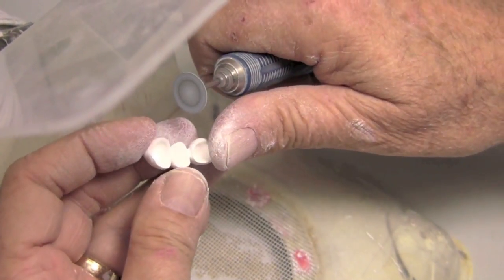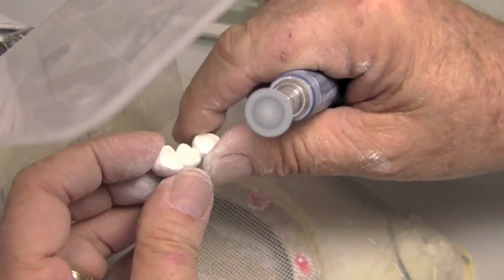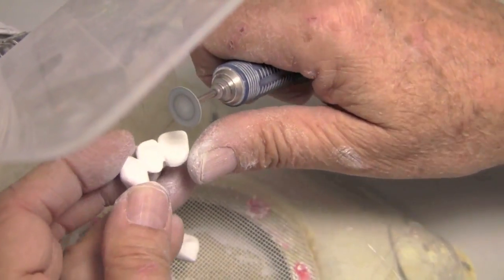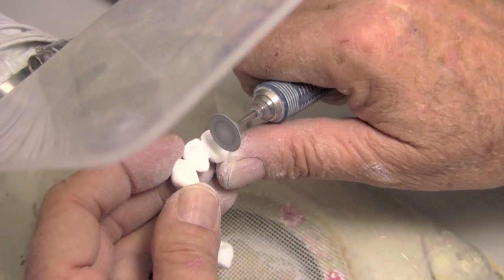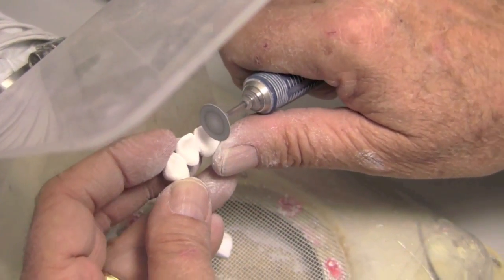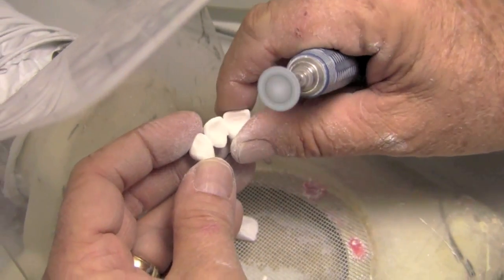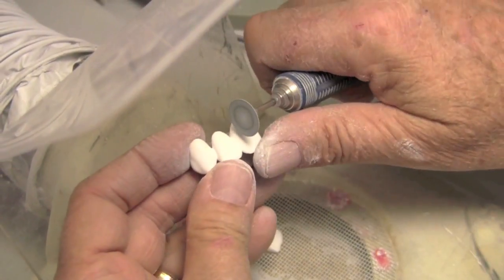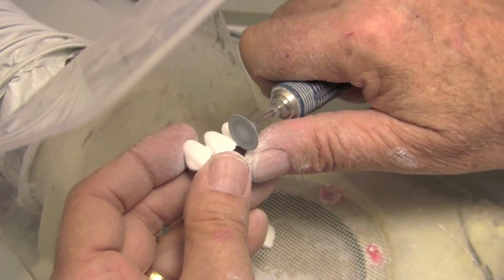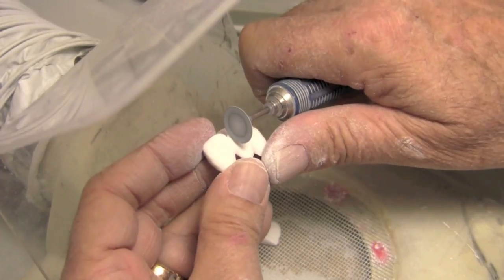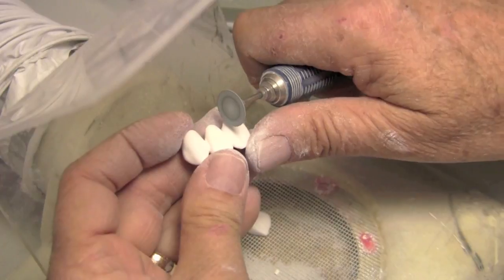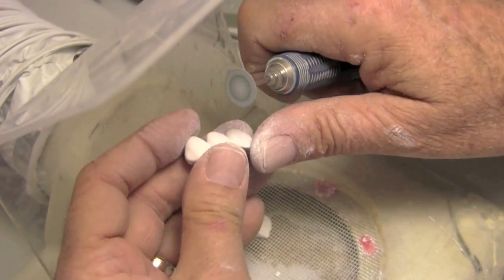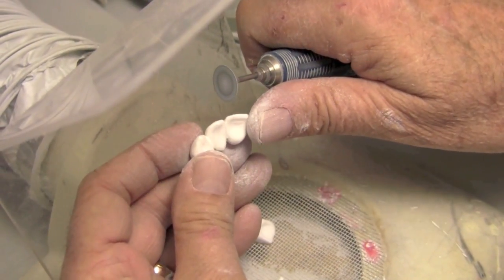And look them over again. Again, I don't do underneath. And I don't do the lingual at all. And in fact, these embrasures might be a little, for a real case, a little too deep. Again, all our strength comes on the lingual because we want to enhance the facial a little bit. So, and again, the volume of your connectors is something you need to consider when you do this for adequate strength. And people have the different ideas about that.